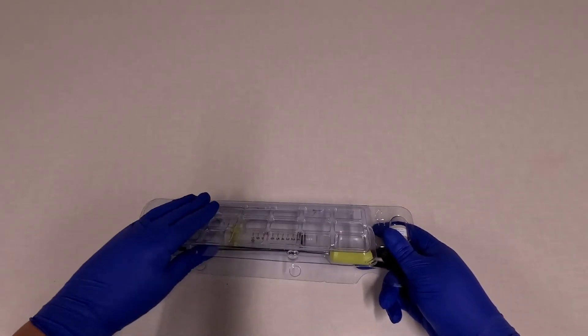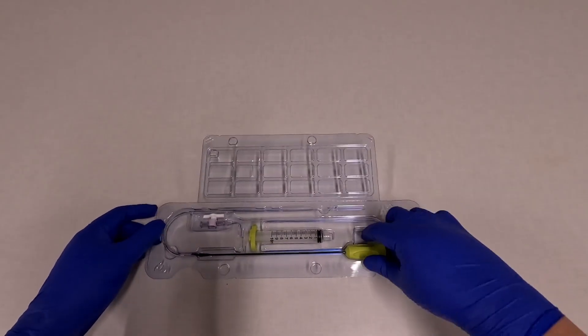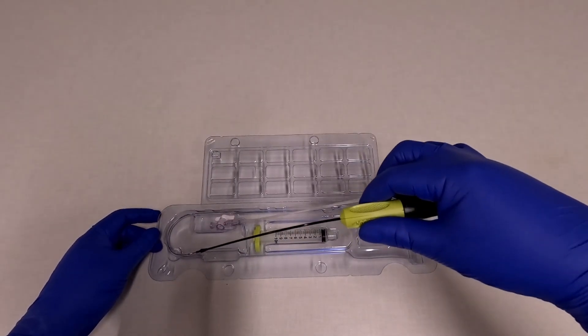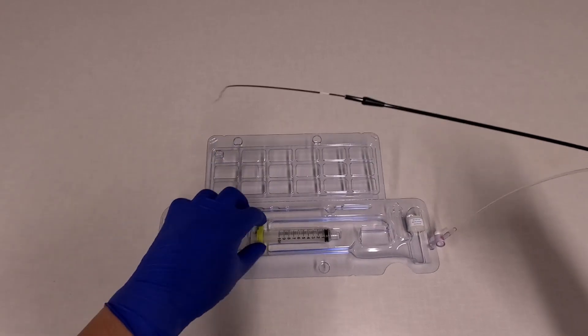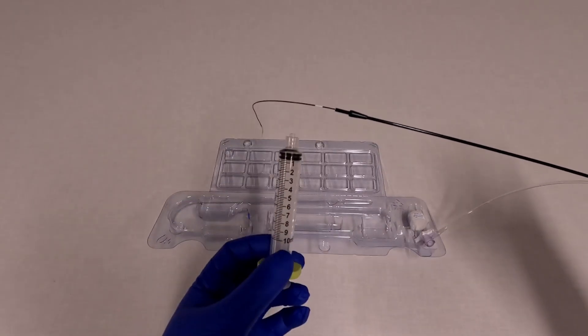When you open it up, you have two components. This is the device, and this is the syringe.